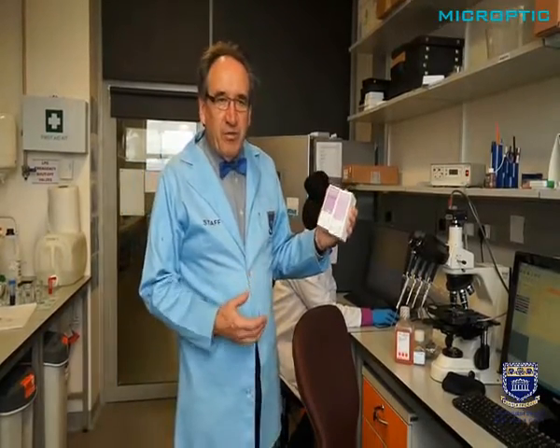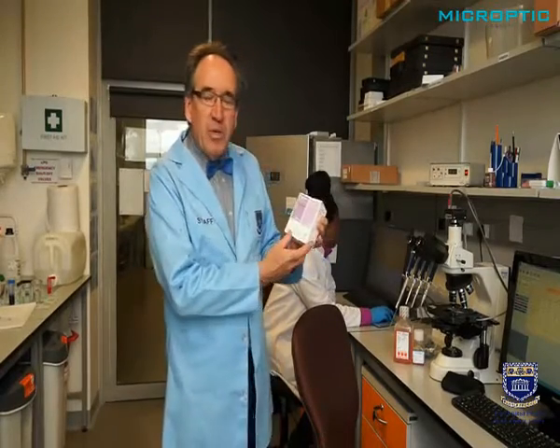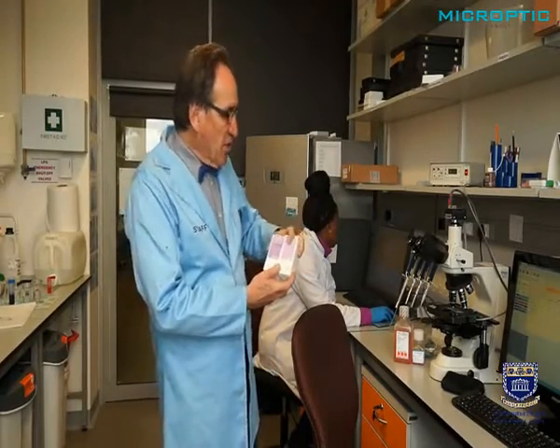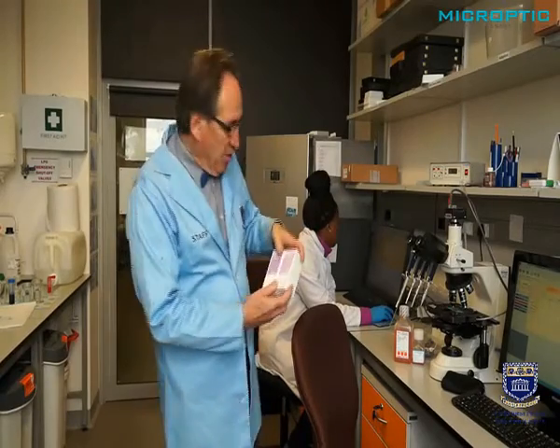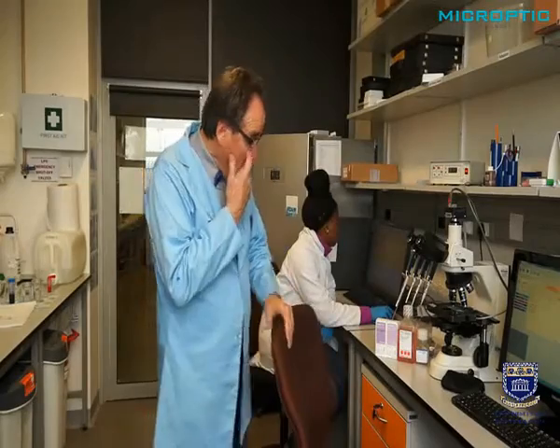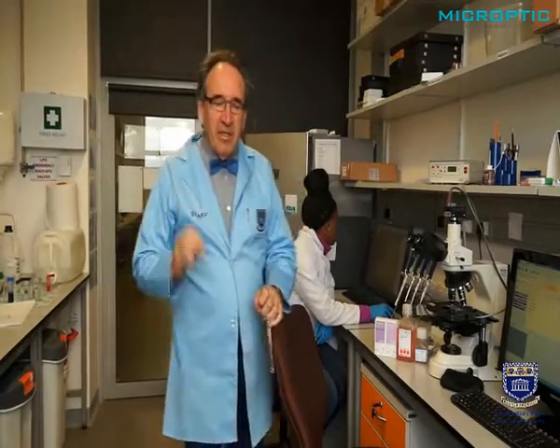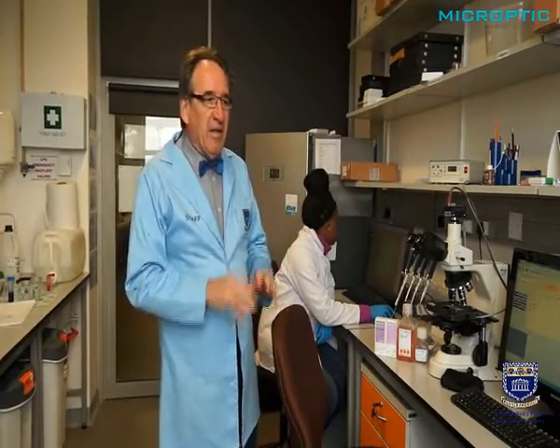And this is very useful if one wants to obtain a sperm pellet with a very high concentration of motile spermatozoa. So you can see all these solutions are kept in the fridge at 4 degrees centigrade, and only small amounts are aliquoted and heated up to 37 degrees. Again, very important to heat it up at least an hour before the time, and then only then use it.